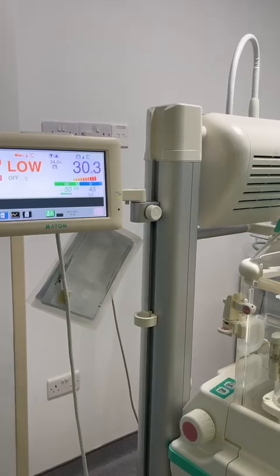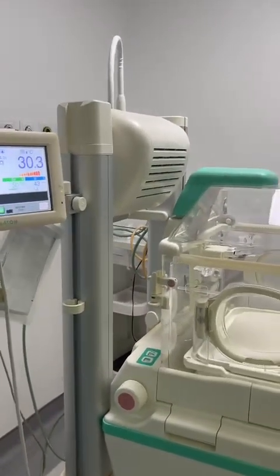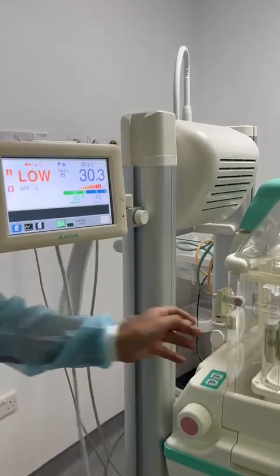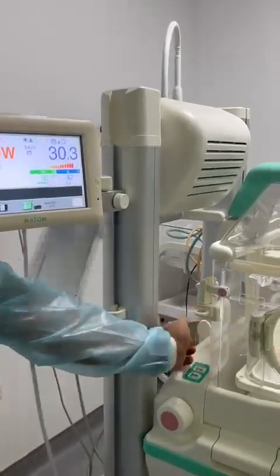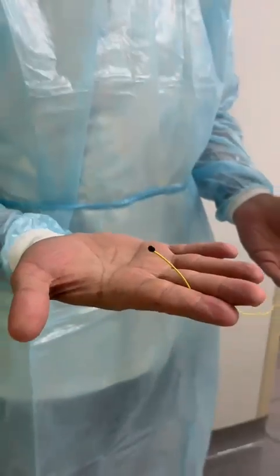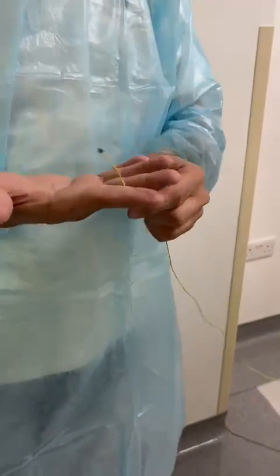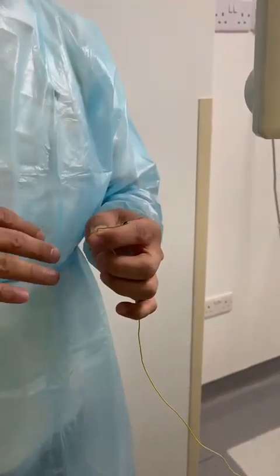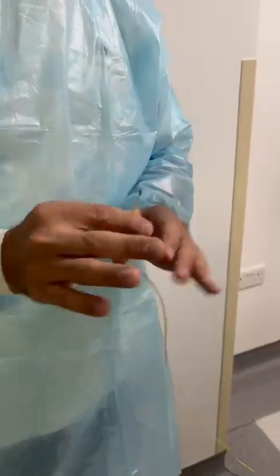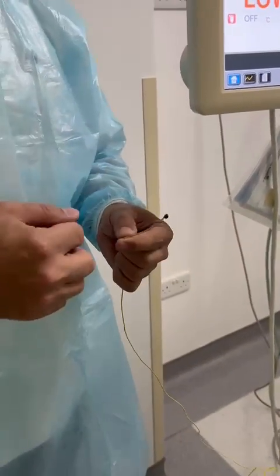The nurses know that it is a bit risky to use the air control mode, because baby temperature has no effect on the temperature inside. If the baby temperature goes up or down, this will not affect the machine. That's why it is much safer to work in the skin control mode.